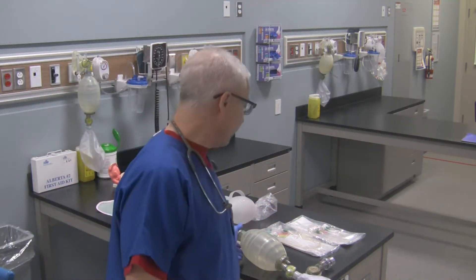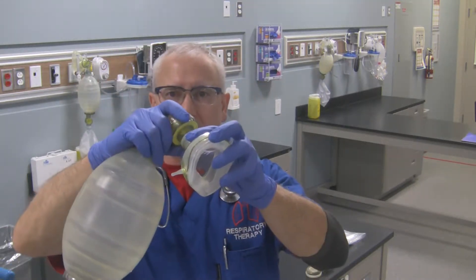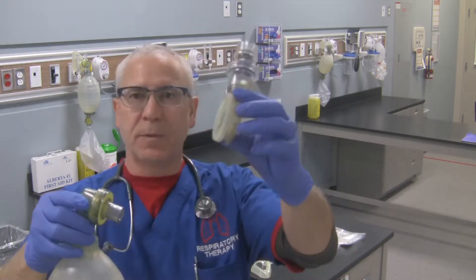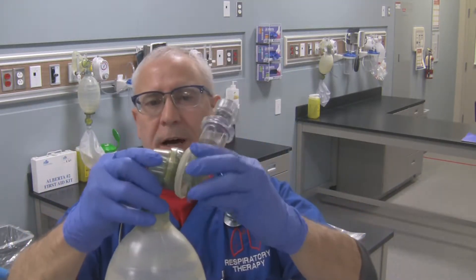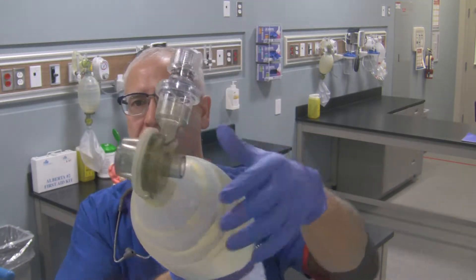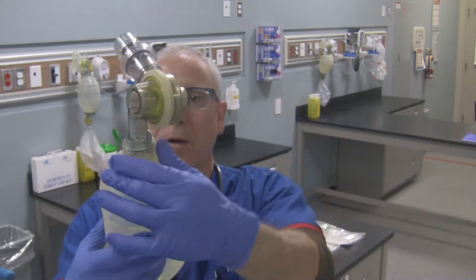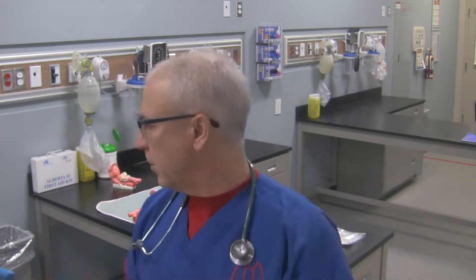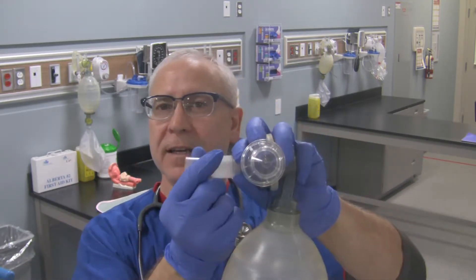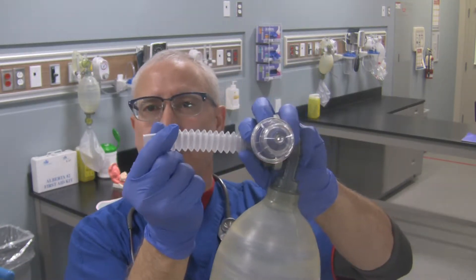Putting the pieces all together once you're switching over, it goes something like this. Take the mask off, grab the PEEP diverter with the PEEP valve, and place that on the patient valve assembly of your manual resuscitator. You can see it's on there correctly. Then grab the tapered flex tube for the closed suction system — goes on there. You can extend it if you require it or keep it in.